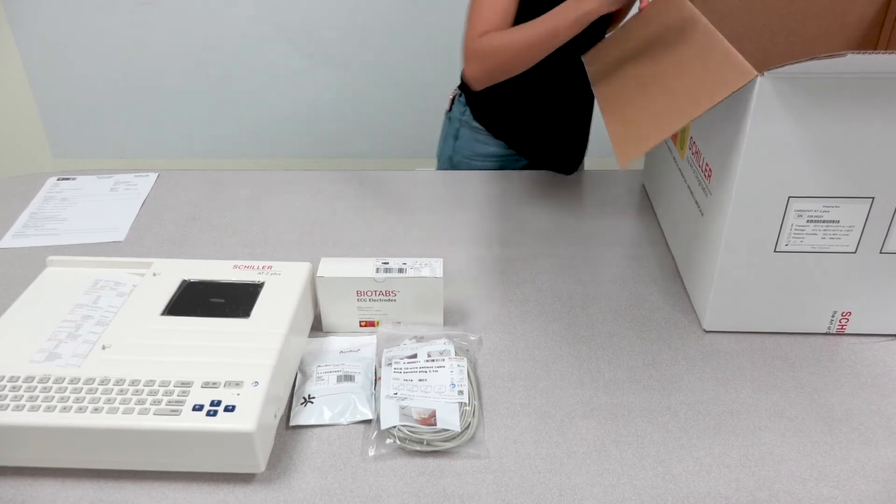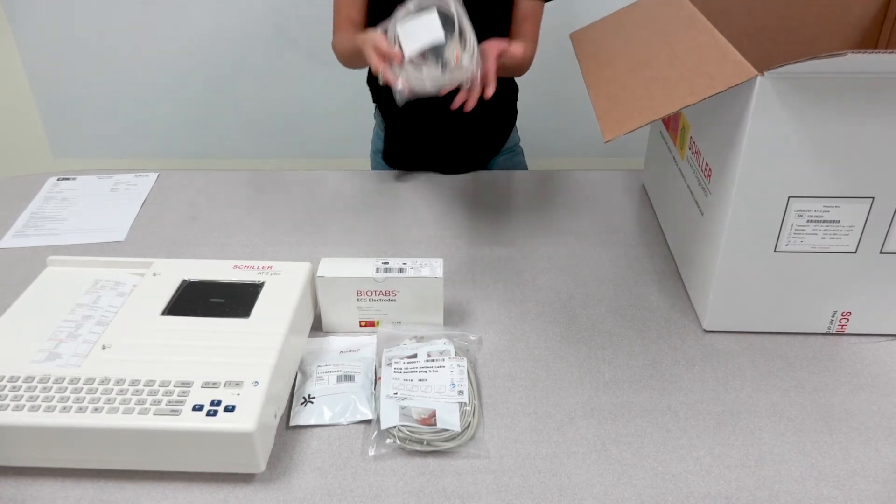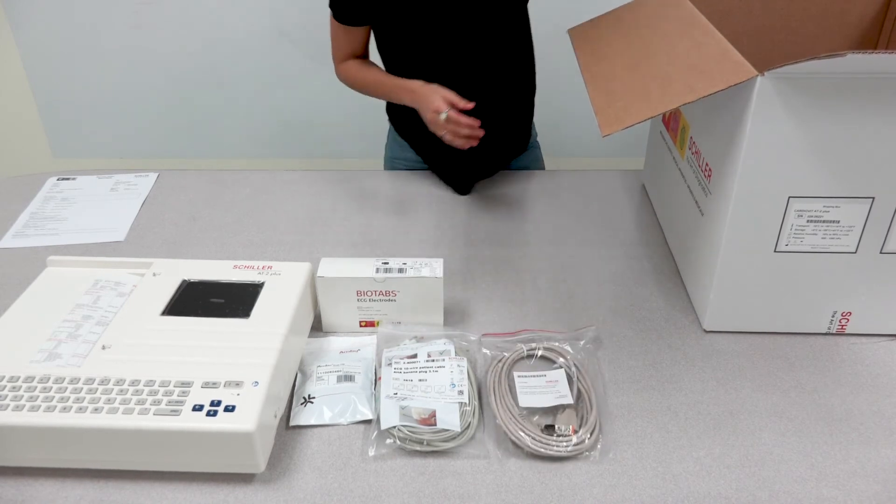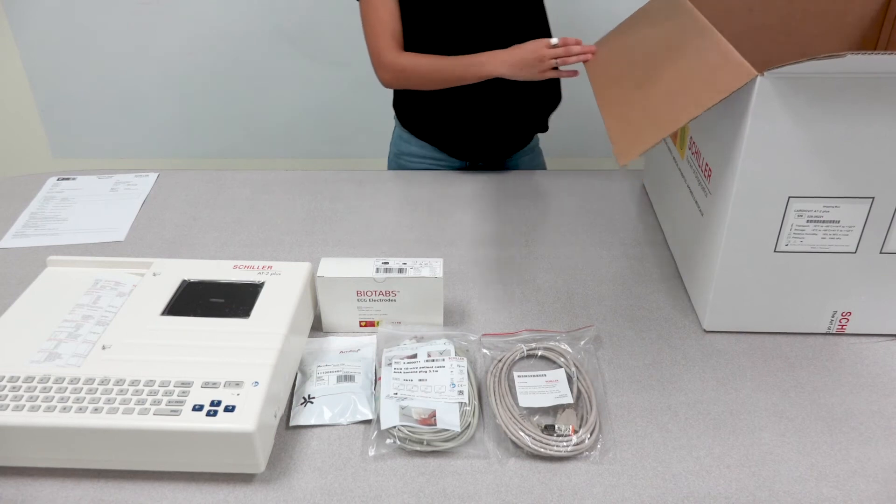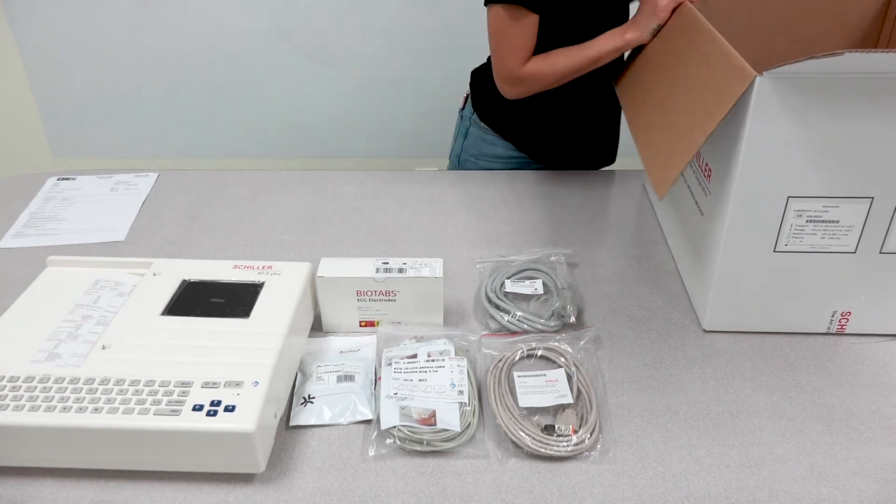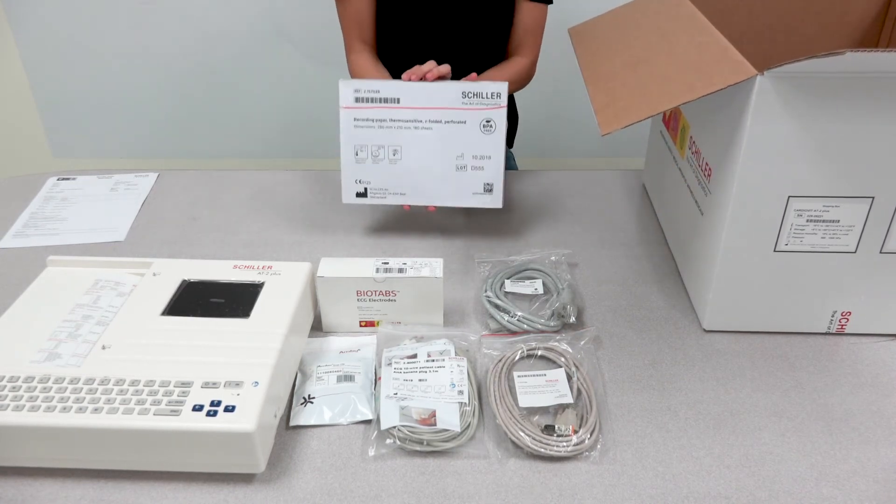Also included are a serial cable for connectivity, the power cord for the unit, and a pack of thermoprint paper.